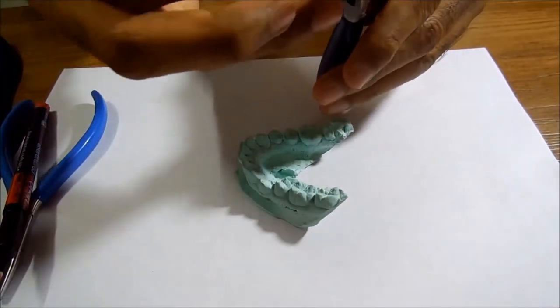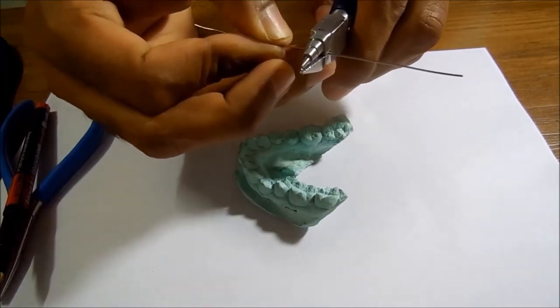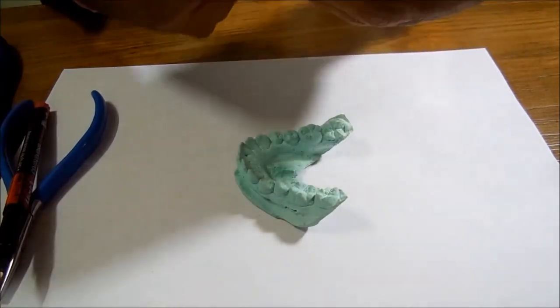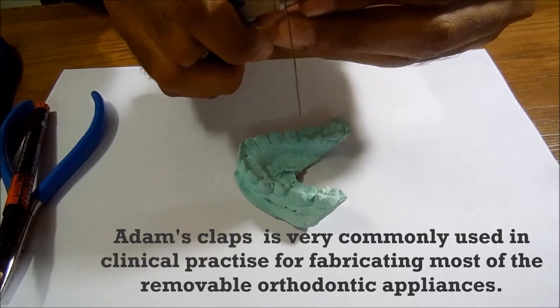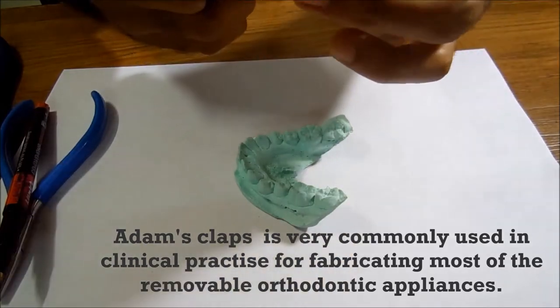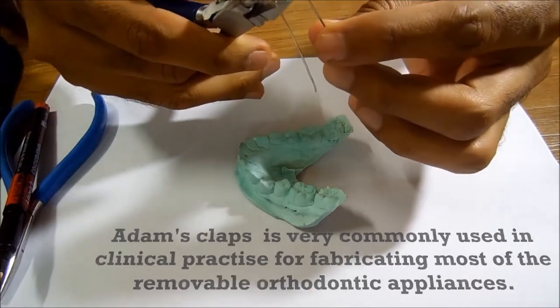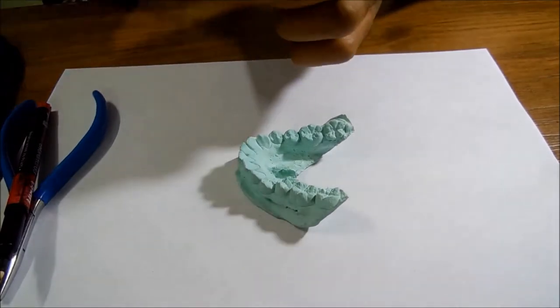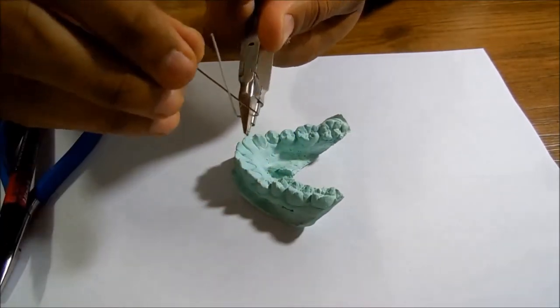Now I have to give this bend. Our final aim is this bend should be 90 degrees, but trust me, there are a lot of bends we have to still give, so it's always better to make it as a V like this.